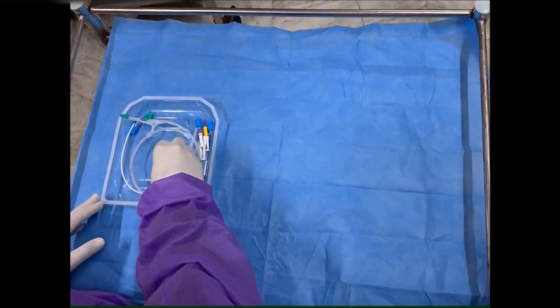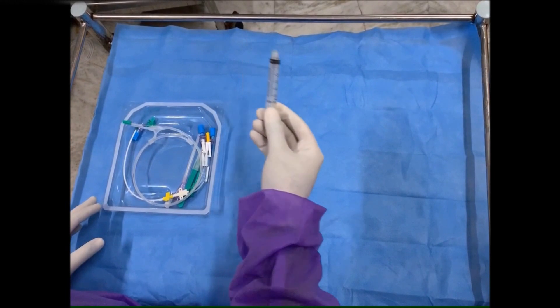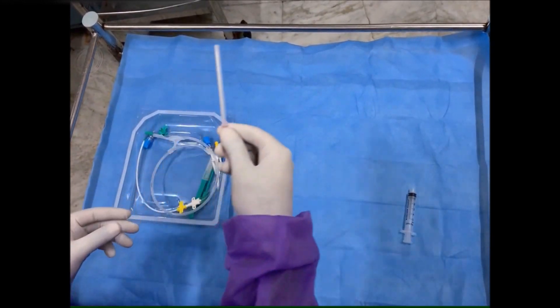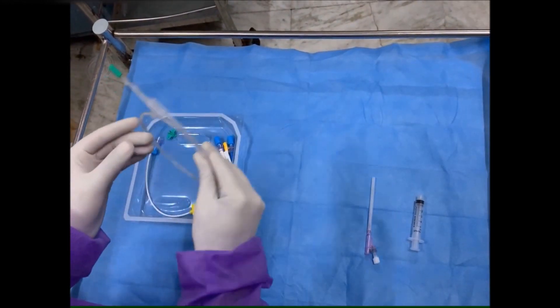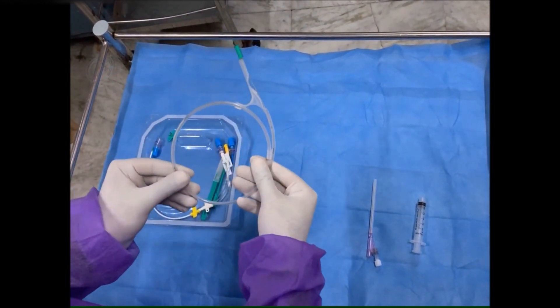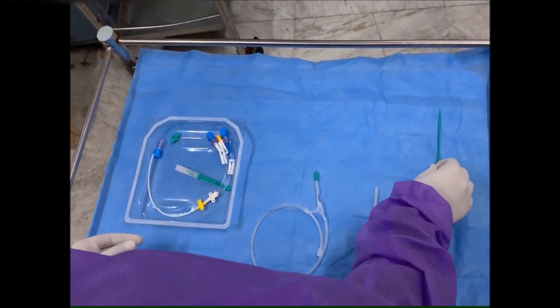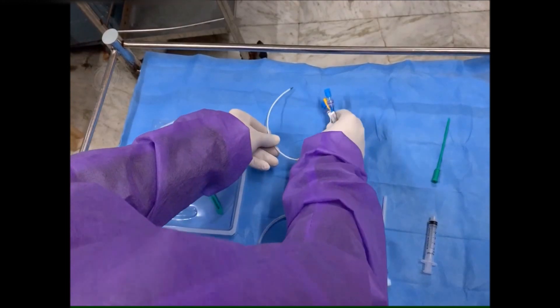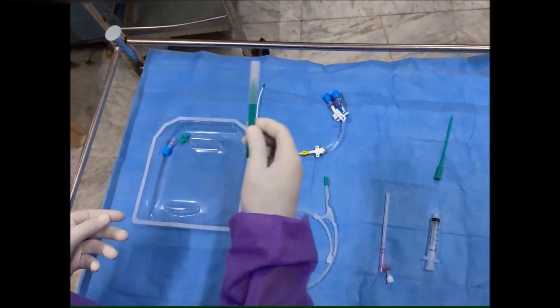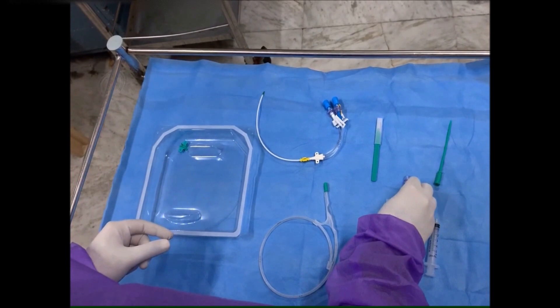The central line set consists of a syringe, vascular access needle, guide wire, vascular dilator, double or triple lumen line, scalpel, and the caps of the respective ports.